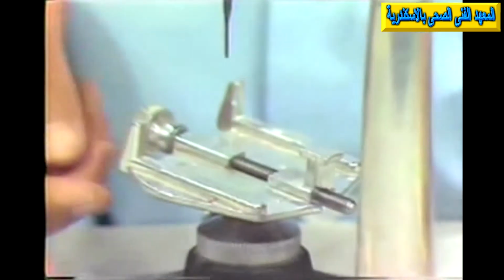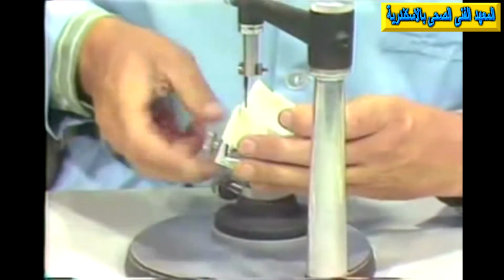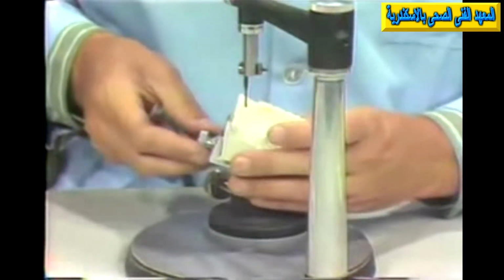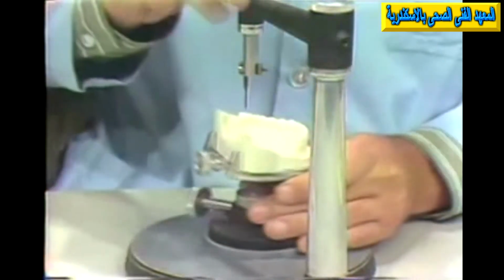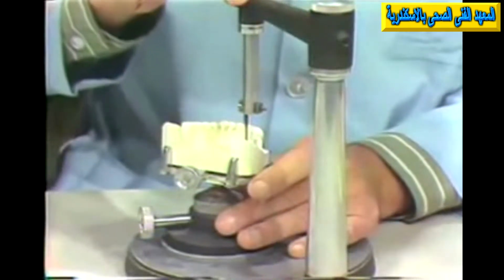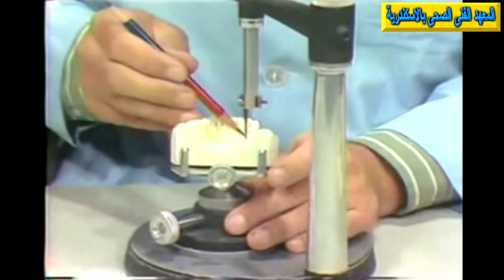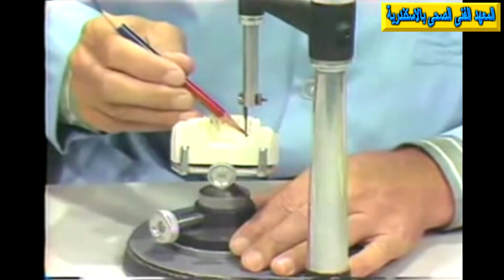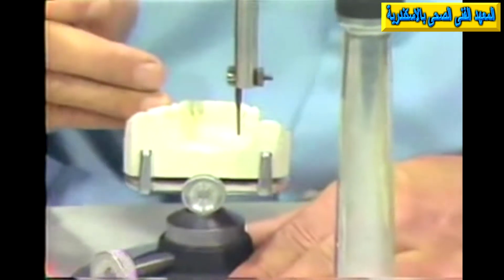Now, as we said before, we have finally decided on a certain path of insertion and removal, which is the most advantageous as far as these considerations of interferences, guiding planes, balance retention, reciprocal planes, and aesthetics. Now, this applies also to soft tissue. It may be that in evaluating this, we might have, for instance, on the soft tissue also an area of interference. Very commonly, this cast does not show a good one here, but in the area just lingual to the bicuspids, very commonly a mandibular torus will be found. This would create perhaps quite a bit of interference, and once we identify this, we're able to go ahead and try to decide on what we wish to do about it.